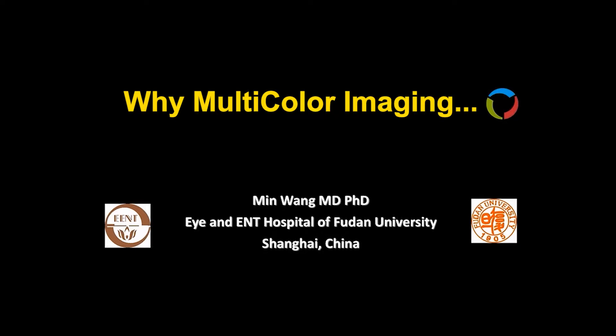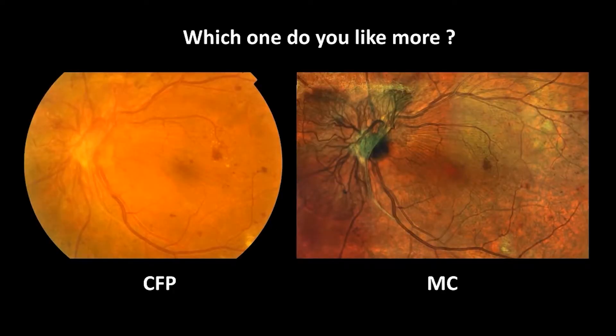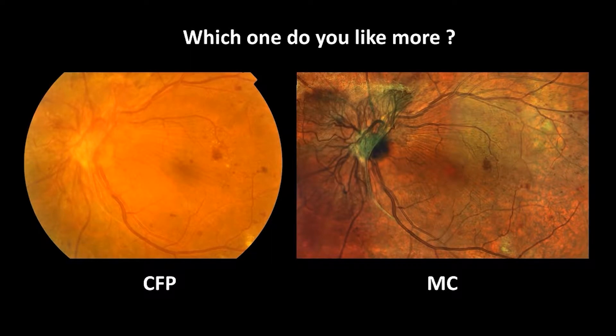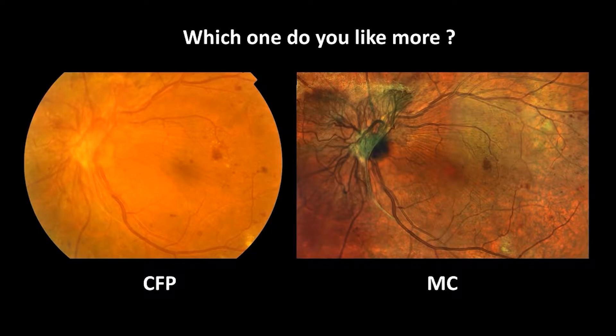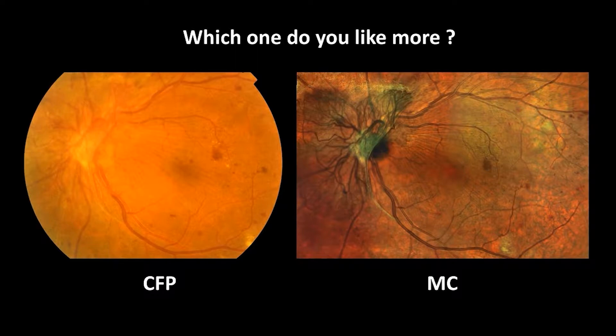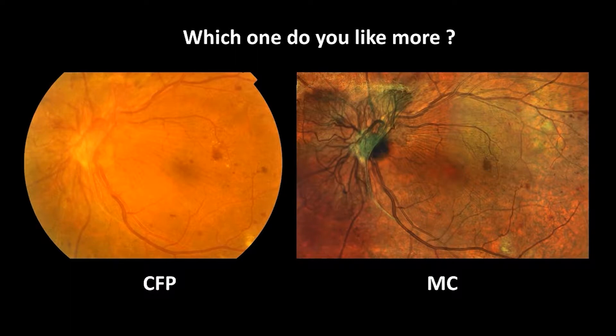Multicolor imaging technology is one of the highlights in Heidelberg's multi-modal imaging family. I want you to look at two fundus images of the same eye of diabetic retinopathy. The one on the left is the conventional color fundus photo, and the one on the right is the multicolor image. Which one gives us more information? I would say multicolor.